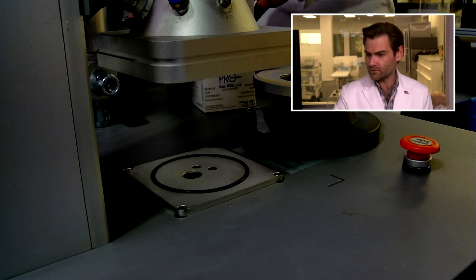Hey everyone, welcome back. We're testing every single mask we can get our hands on. Today I'm testing the OG Pro Gear Prestige Ameritech N95 — it's the duckbill style. Let's get it in the clamper and see how it does.